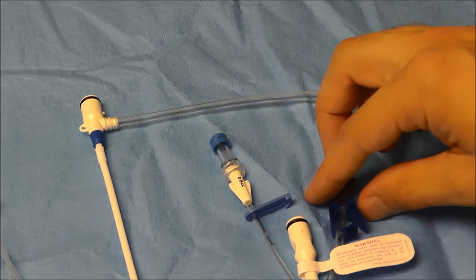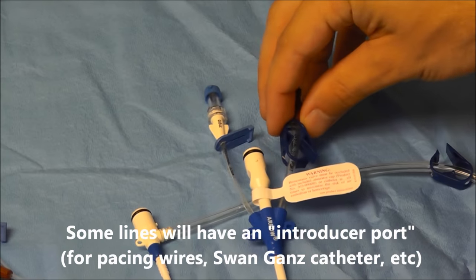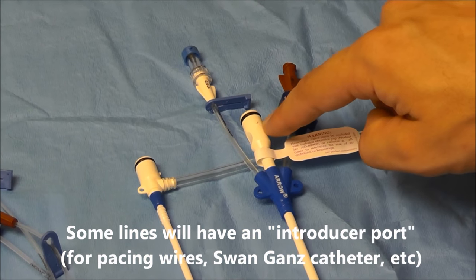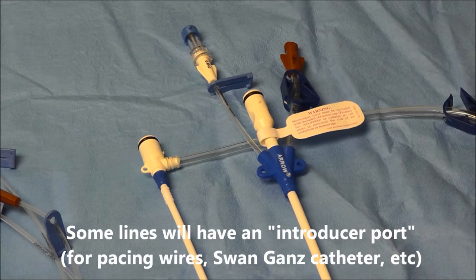Another thing that you're going to notice is that certain types of central line catheters have this introducer port right here and right here.